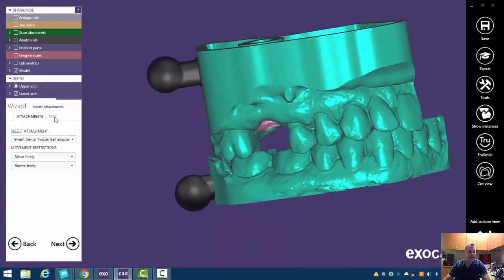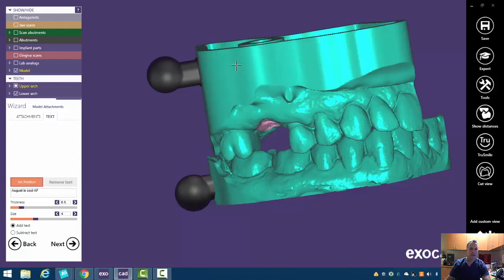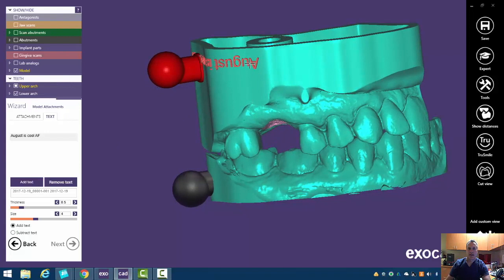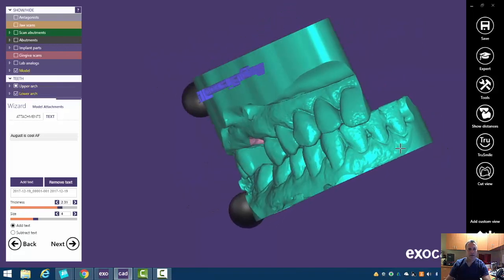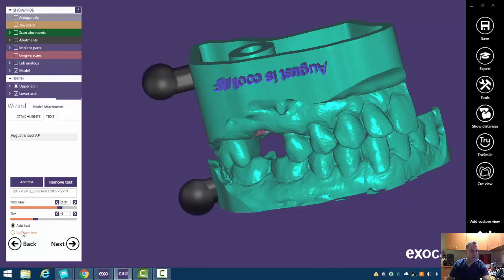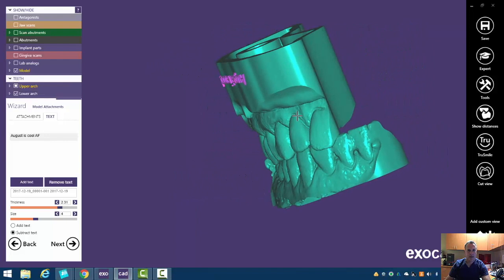We can also add text if you want to. We can write here a little label, then click 'add text', and just click and move that text around. We can change the thickness of it, make it really come out if we wanted to, or even invert it so we can subtract it and make it go in a little bit, and change that thickness.